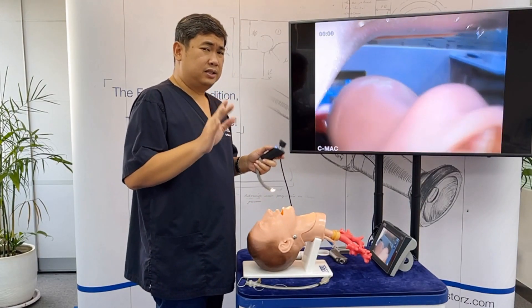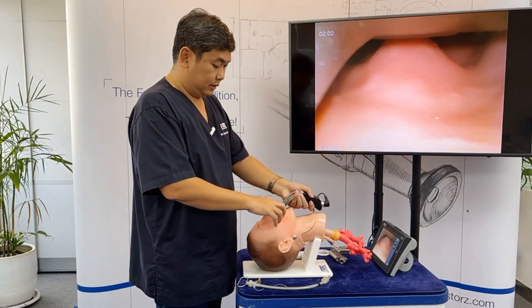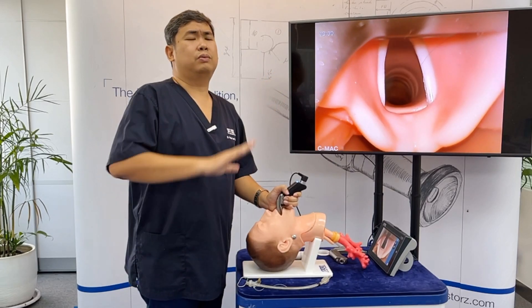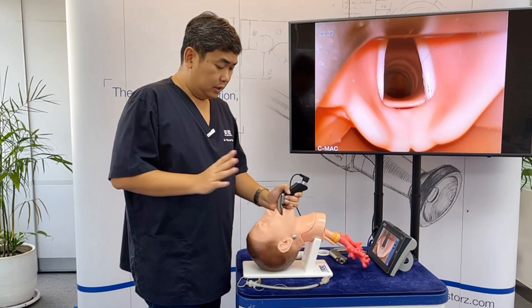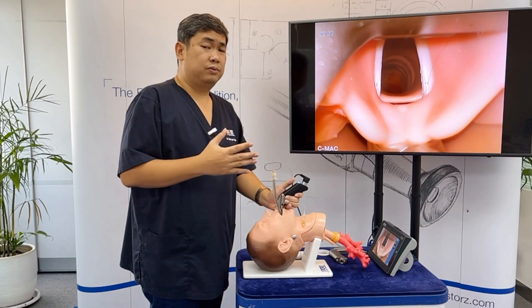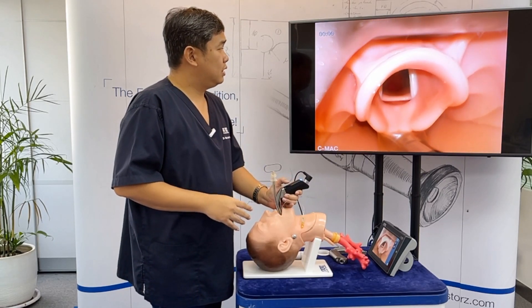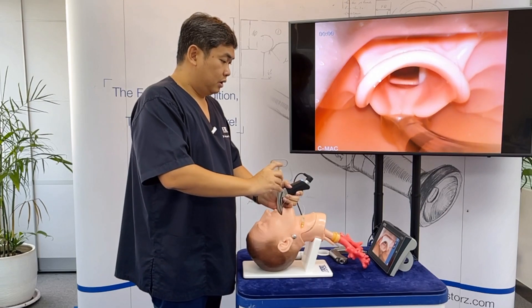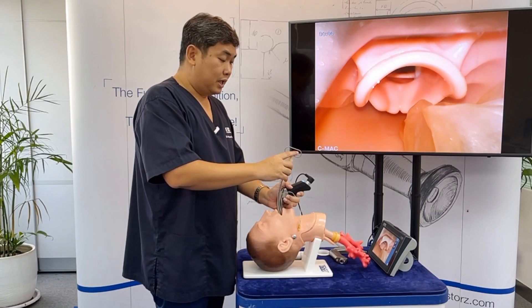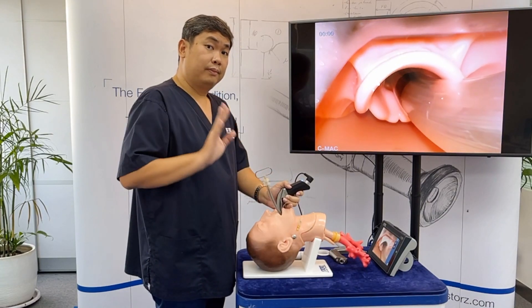Next is proper positioning of the blade. Many times we're excited to see a very close-up view of the vocal cords, but when we push the ET tube down, it's very hard to maneuver because we don't have a reference point. What is better is to position the blade at the vallecula so that we can see the ET tube approaching and troubleshoot its positioning.